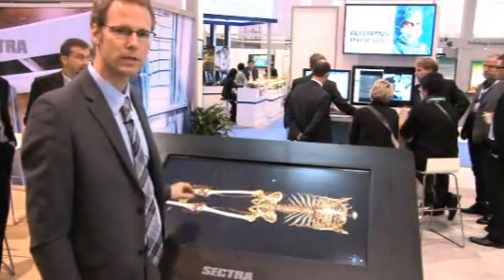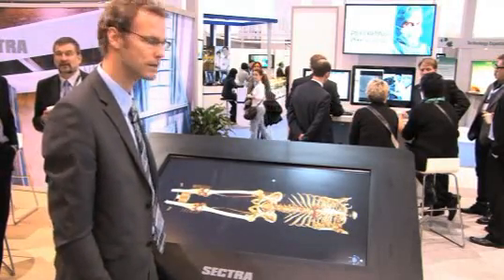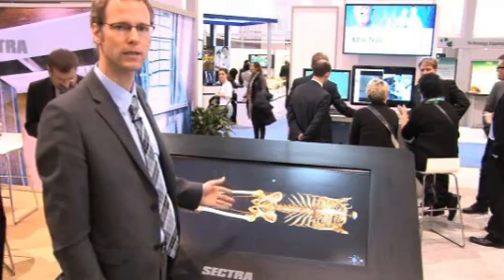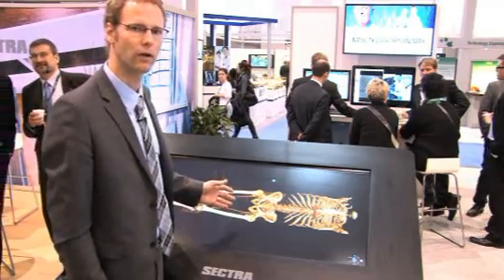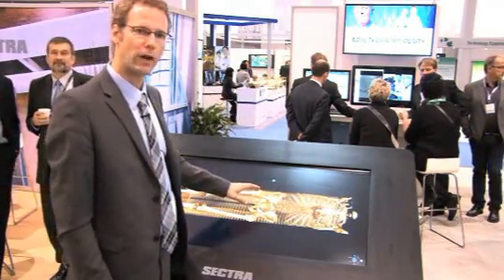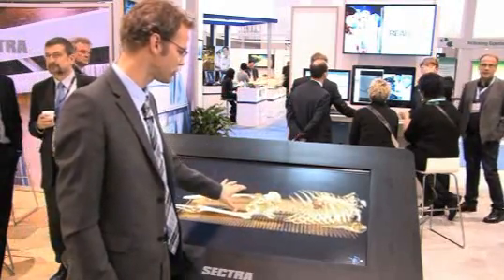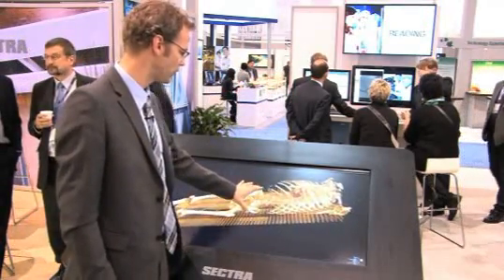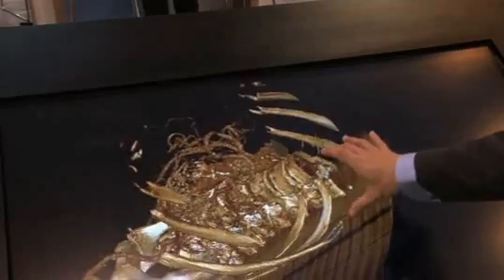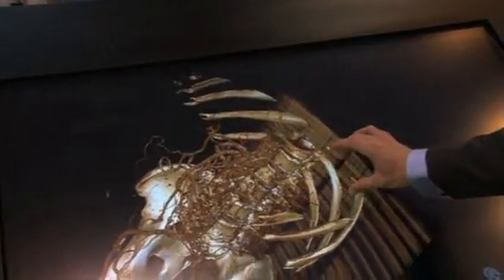The Sektra visualization table is developed for multidisciplinary team meetings, for example trauma cases or pre-surgical planning. In this case, I want to show you an aorta aneurysm and what we can do to find it and prepare for surgery.